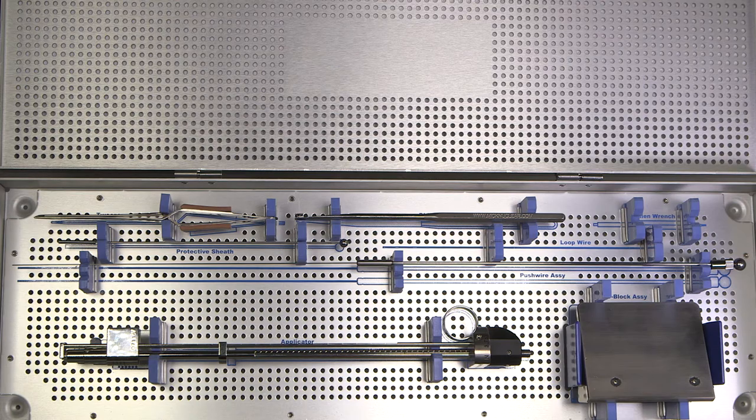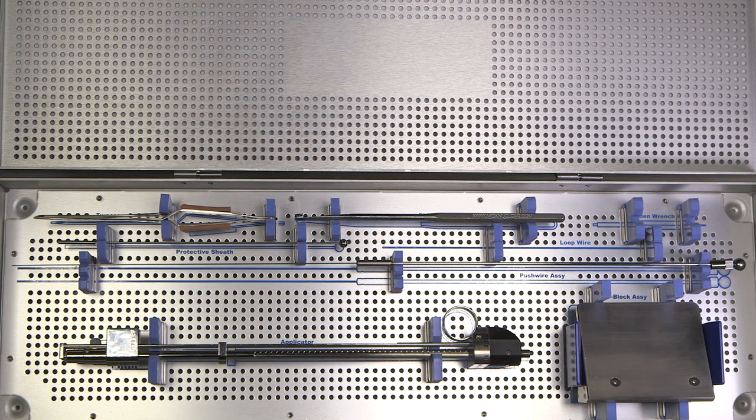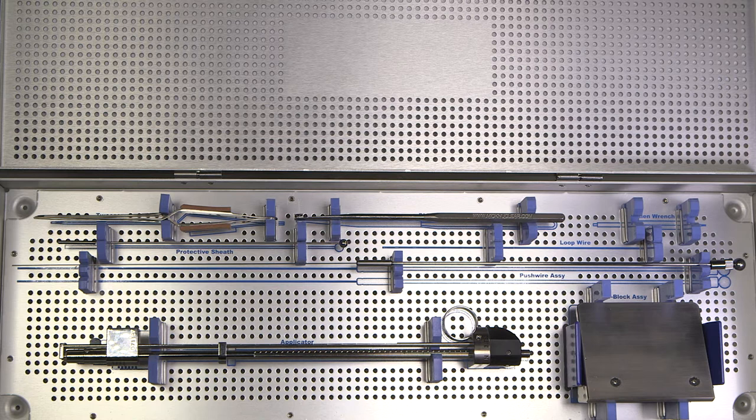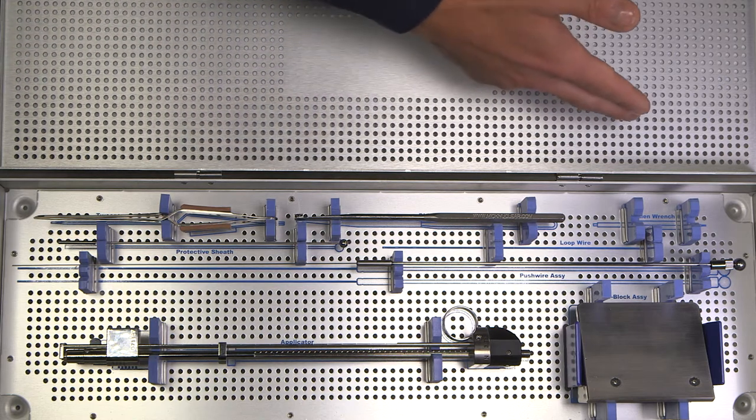I would like to start by demonstrating the assembly and dismantling of the applicator required for the cleaning process. You will receive the applicator and ordered accessories placed in the intended slots in our specifically designed sterilization cassette.